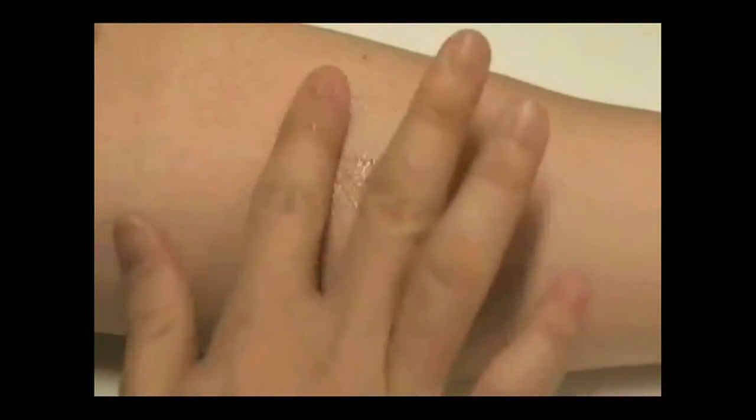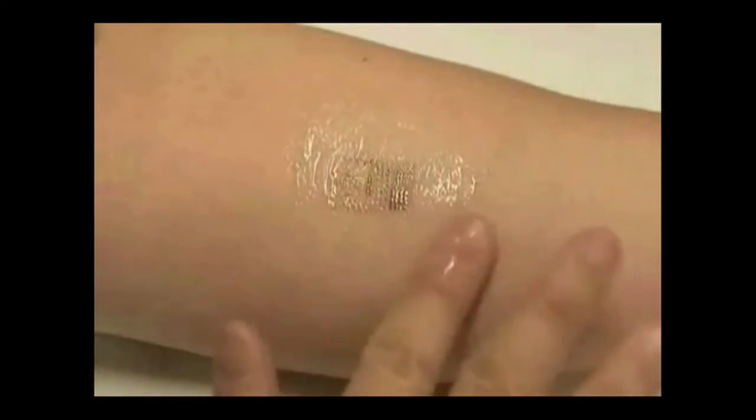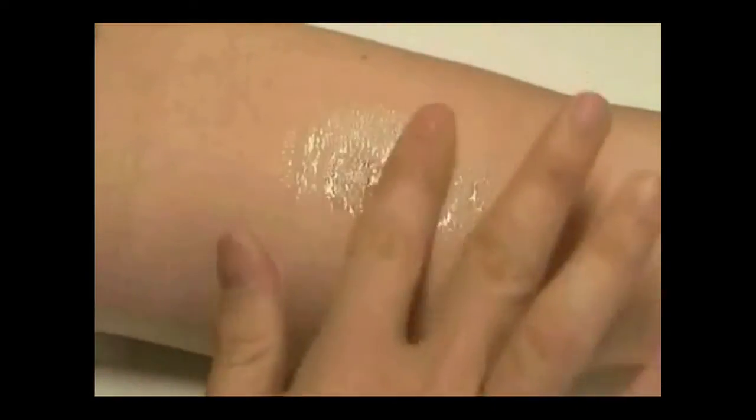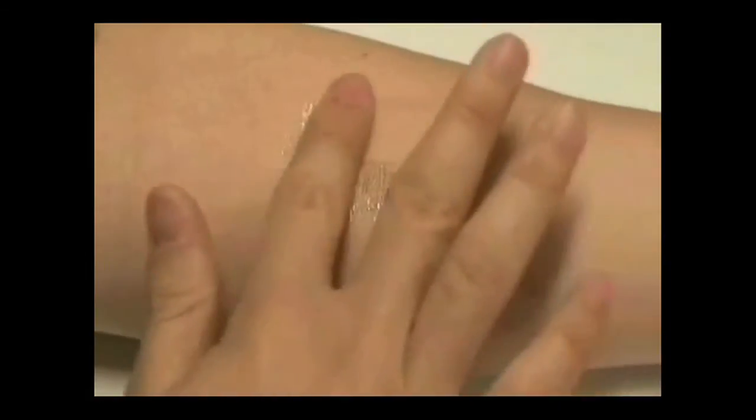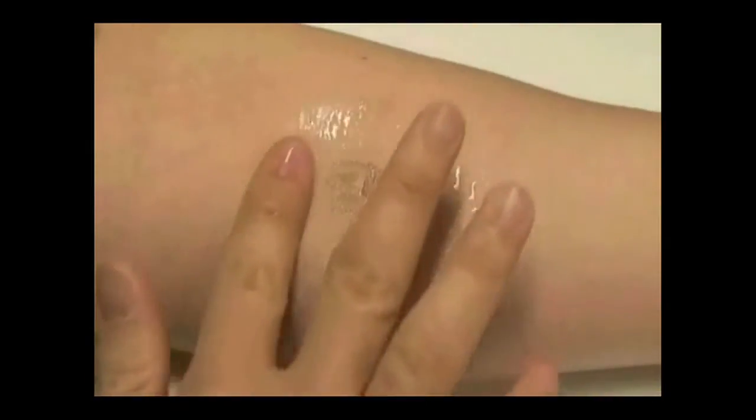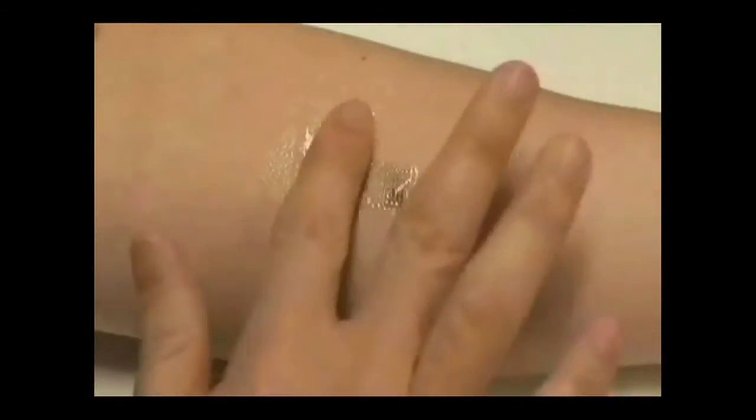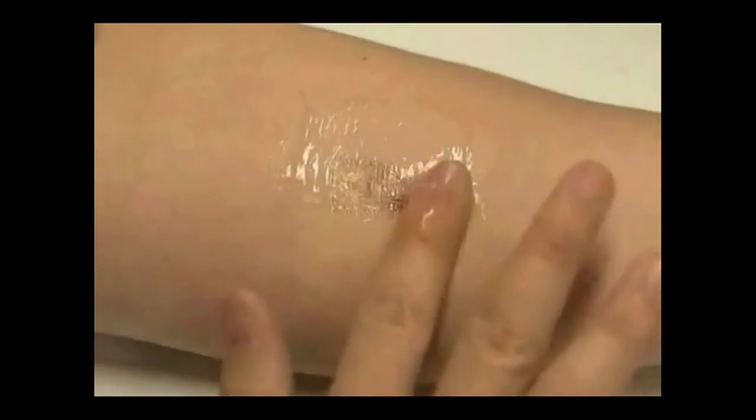It's electronics on the surface of human skin without using any glues. Such a method will enable us to monitor the medical conditions of the wearer.